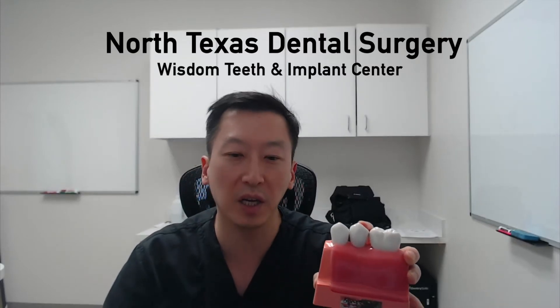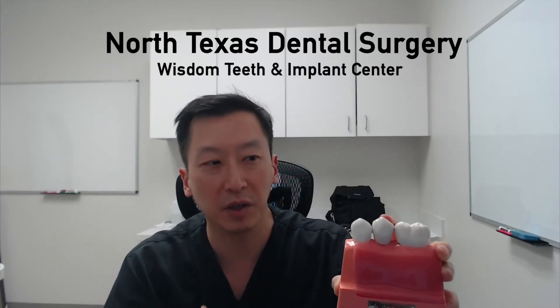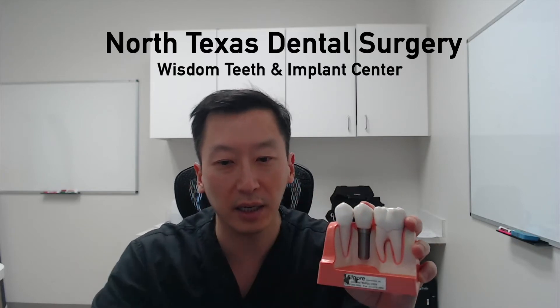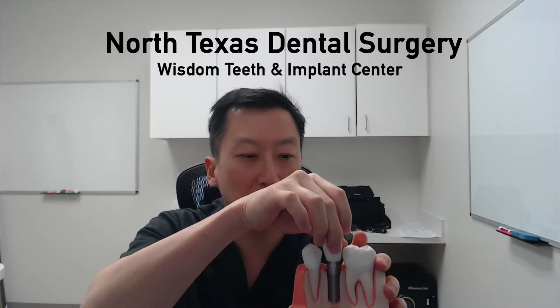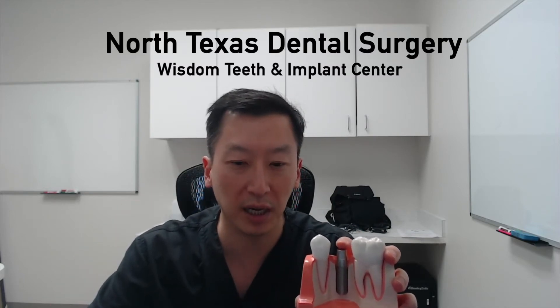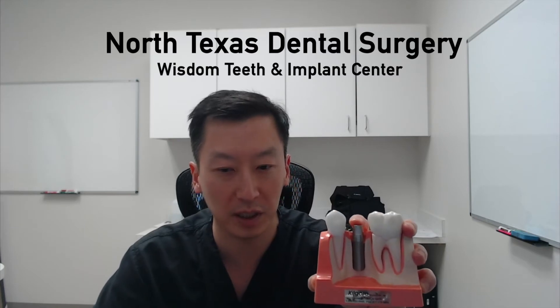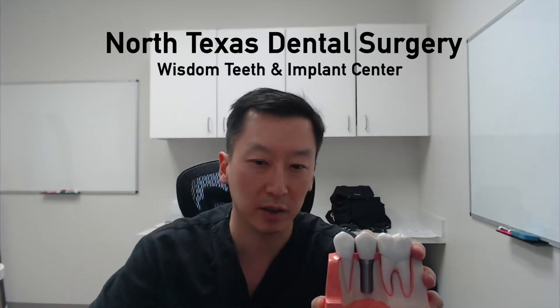Some people get a little confused here — they think that everything is the dental implant. Again, the dental implant is just the titanium screw. This metal piece, which is the interface between the implant and the crown, is called the abutment. So that metal piece is the abutment, and the crown is what goes on top of there.